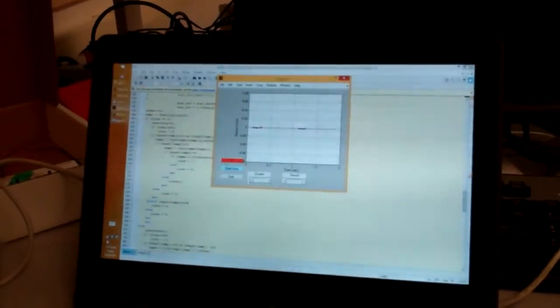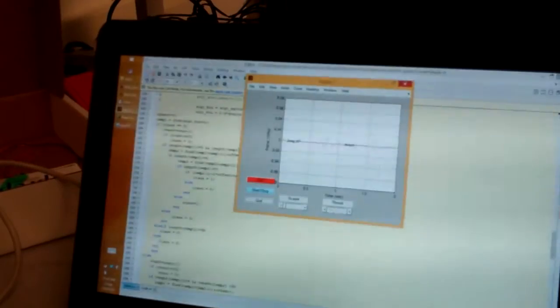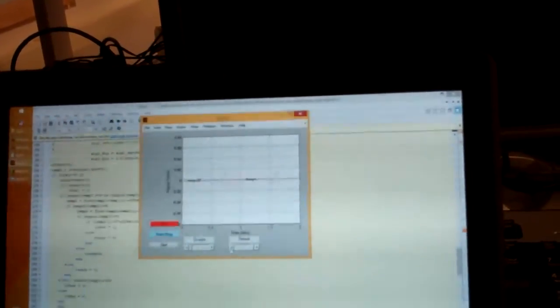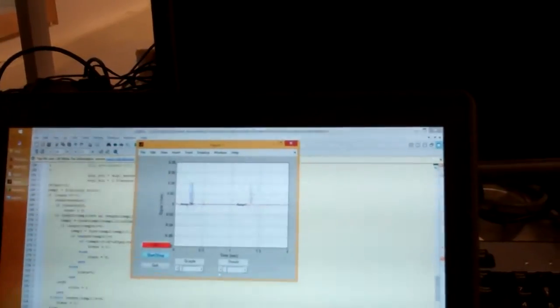No, this is just him blinking. Okay, so you've got clear isolation of the blink there. Yeah. So you're doing some sort of first derivative or something. Yeah, we're doing a derivative square. And for detecting the peak in the background, we're taking the derivative, squaring it, and then thresholding it. So it's like Pan Tompkins. Yeah. Kind of like that, without the running average.